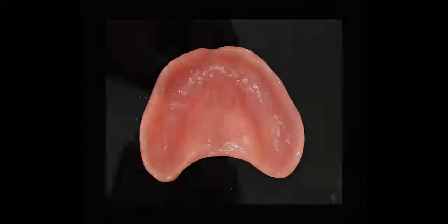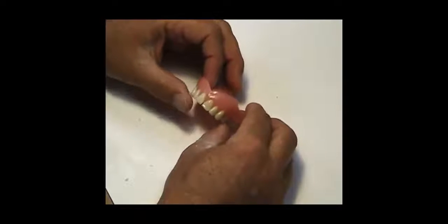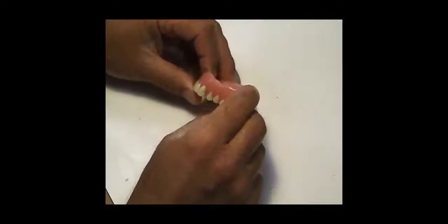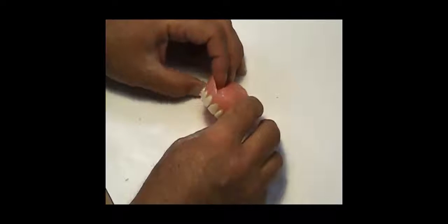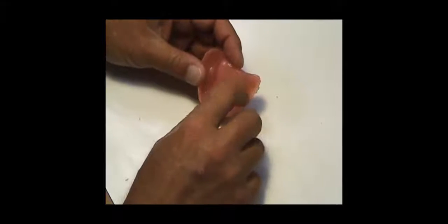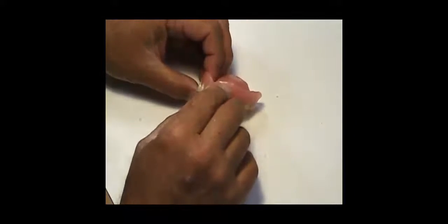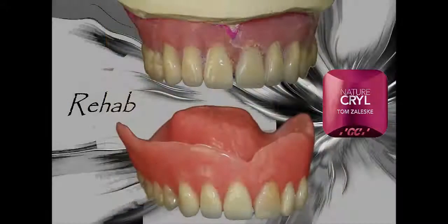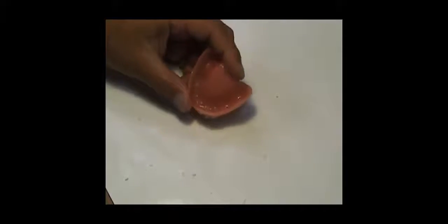That was to answer those who asked why I didn't contour it and make it all fancy. I know some authors like to take the denture and fancy it all up after the fact, but after 30 years in this business, if I made this any fancier I probably would have been subjecting myself to a possible rejection. Rather than go through mental gymnastics to try to do something better, all I'm concerned with is fulfilling the patient's expectations. They're getting back exactly what they had except it's new.